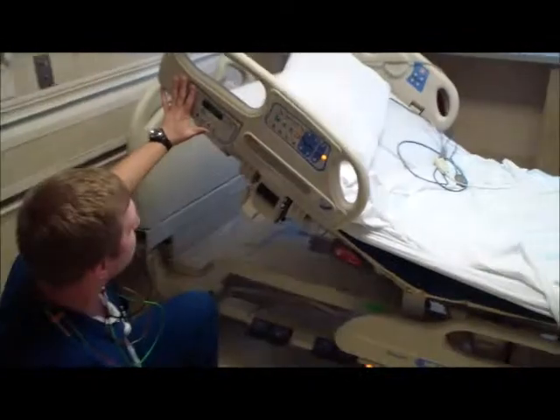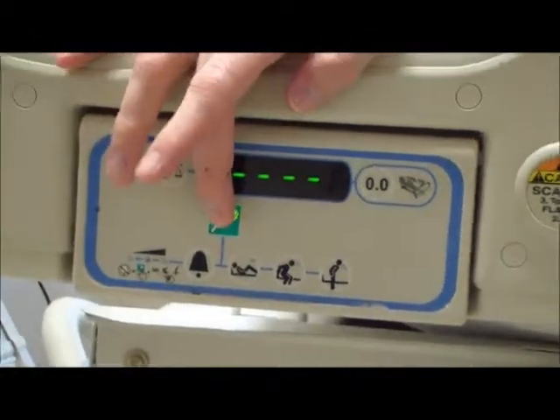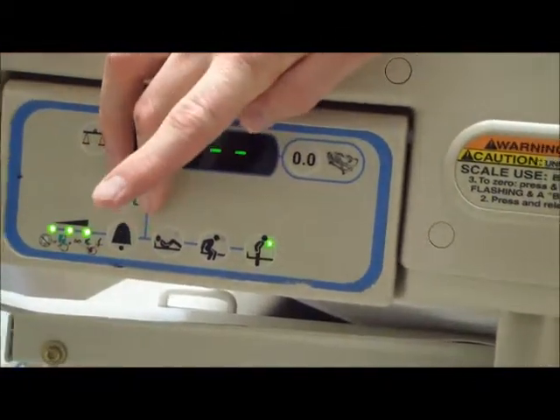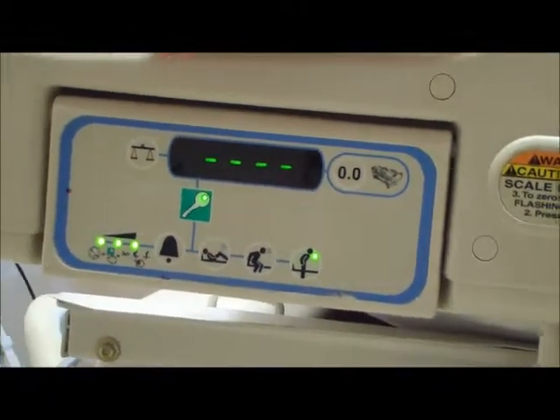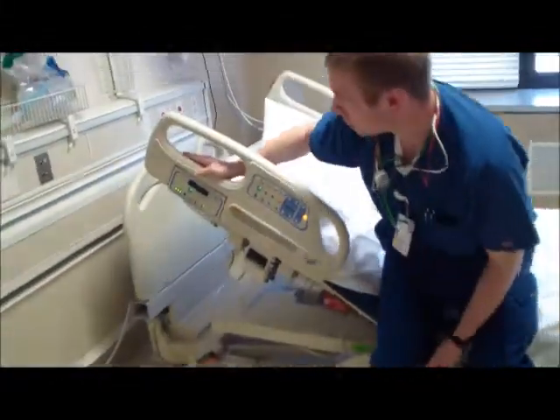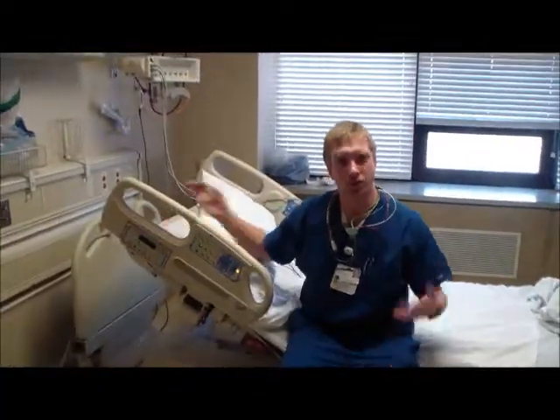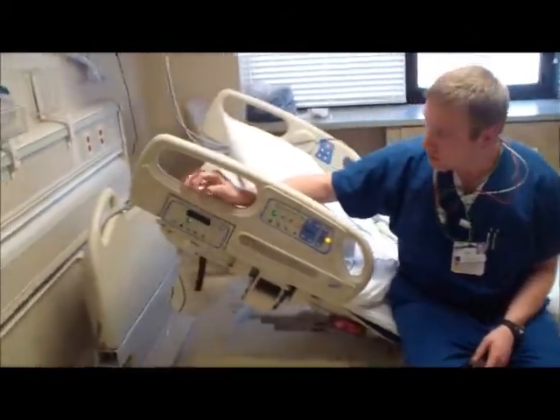So our bed alarm right up here, very important, especially if we take it off, we need to put it back on. So in order to turn it on, you're going to hold the green key and set it, and you'll hear a confirmation solid note. Then if a patient is actively getting up out of bed, you're going to hear an alarm just like that. And then once the patient gets back into bed, you're just going to reactivate it.